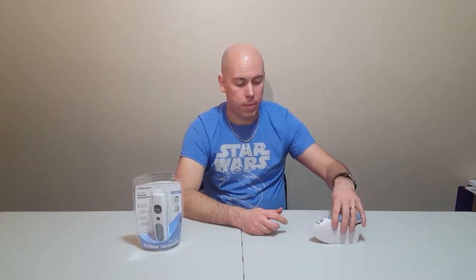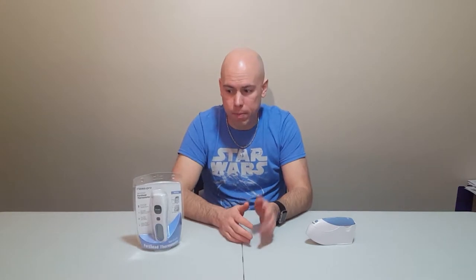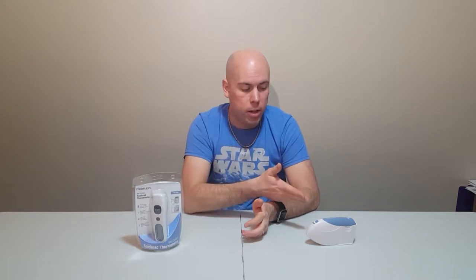For discussion today, we have our $80 in-ear thermometer, which is a very similar unit to what a lot of hospitals use. And it's going up against the MeasurePro non-contact forehead thermometer, which I picked up on Amazon for $8. So I've got an $80 thermometer versus an $8 thermometer. Which one's better? I don't know — let's go find some test subjects, take some measurements, and we'll find out for ourselves.